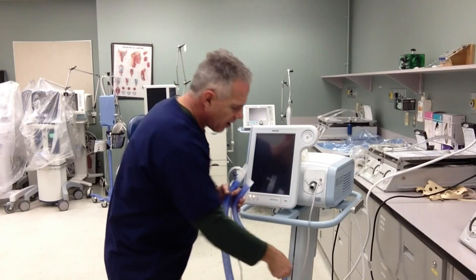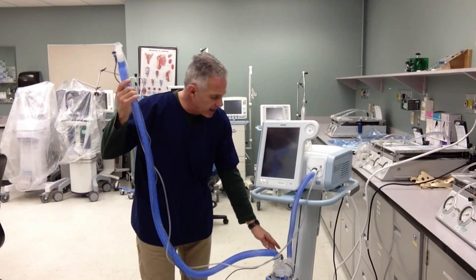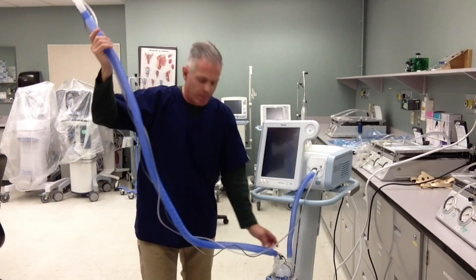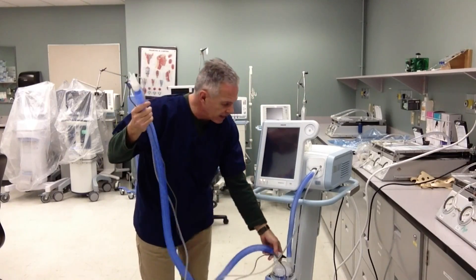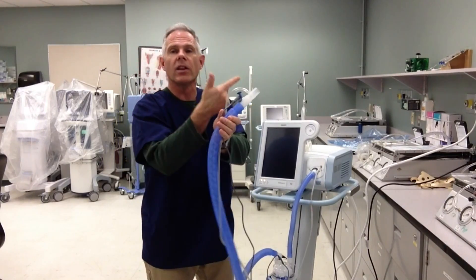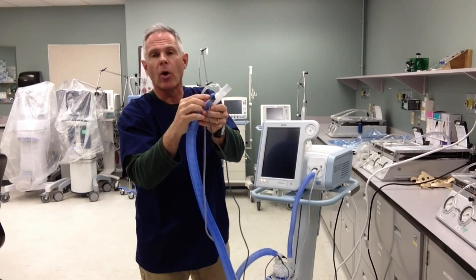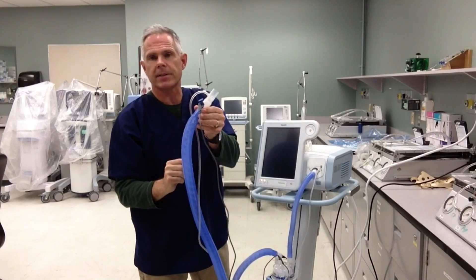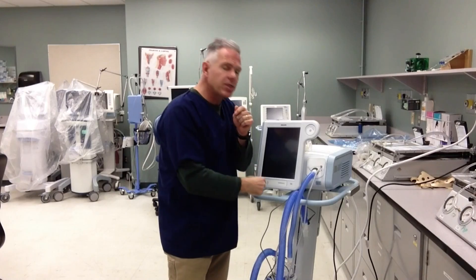So how does this set up? We have a gas source from our ventilator. We're going to use this larger blue tubing coming right down to our humidifier pot. It's a regular humidifier pot — just a Fisher & Paykel. We've got a heated circuit so it's plugged in at the back and hooked up in there, so it's got power delivery. There are heated wires inside the circuit and you can actually see those inside there. That simply plugs right onto the humidifier pot and it's just one circuit delivered to the patient's mask, with a little pressure manometer. I also have a temperature probe both here at the humidifier pot and here just before the patient's mask. So that's our simple circuit — it's a one-way circuit. Unlike the other ventilators where we had an exhalation port on the ventilator, this one does not.